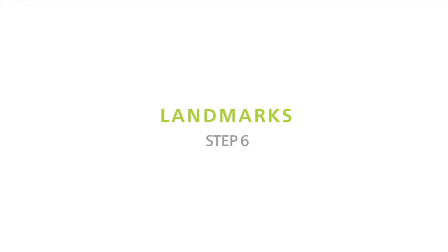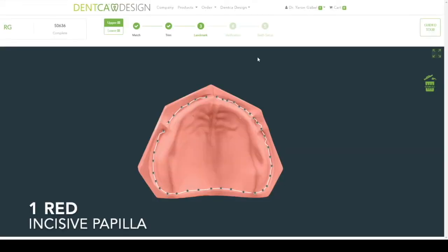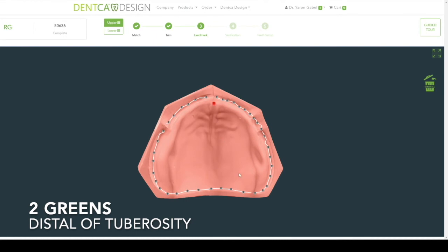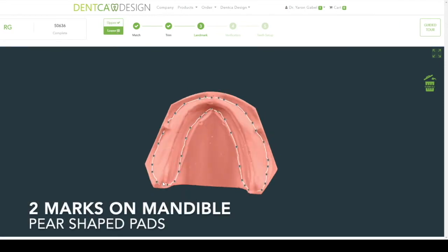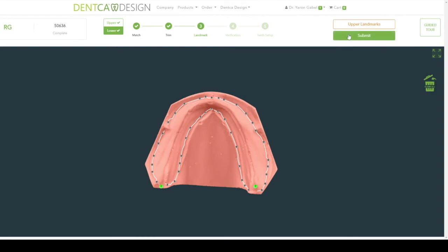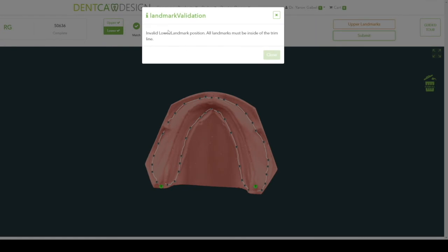Landmarks. The landmarks consist of three upper points and two lower points. Please select the incisive papilla on the first upper landmark, shown in red. It is important to ensure that the landmarks are placed within the trim line. If the trim line was established too anteriorly, you can return to the previous step to adjust by clicking on Trim in the above panel, then Adjust, and click Done to move forward again. Click the lower button to choose the two lower landmarks. In the case of a single arch upper, it's easier to set the lower landmarks on the distal of the last molars if present. This will ensure the occlusal plane is the desired height. You may select, move, and delete points using the same convention as before.